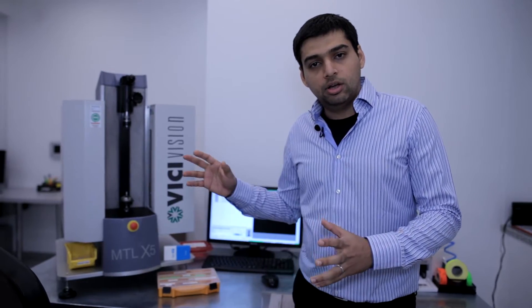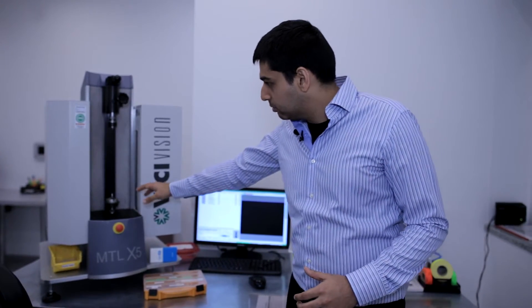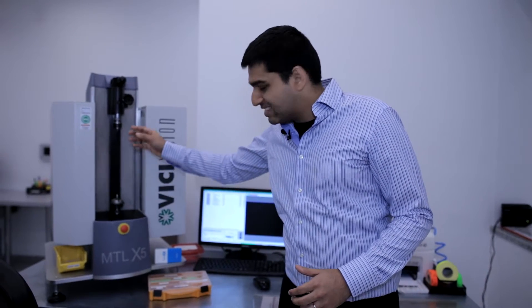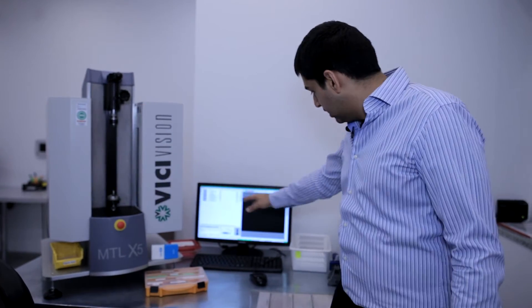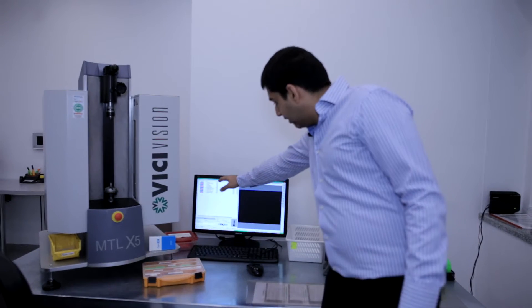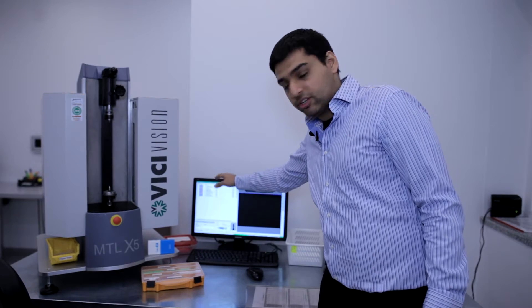From all the production parts there is a certain selection, random selection of the parts according to a particular number and then they are put into this special machine. There is a laser that scans each part of the surface. It then creates an outline and there are various parameters that are measured up to four decimals. So this is how you get pinpoint accuracy on the implants.